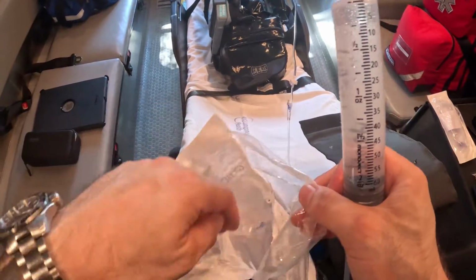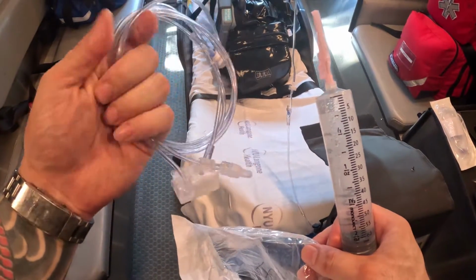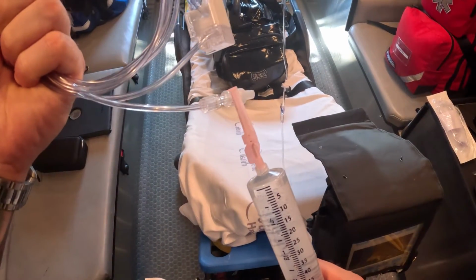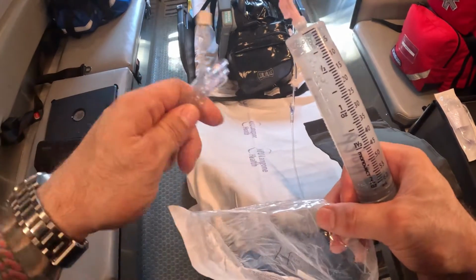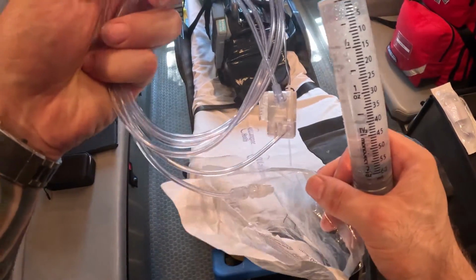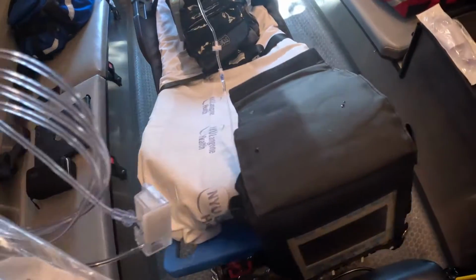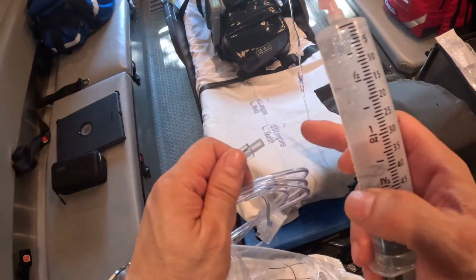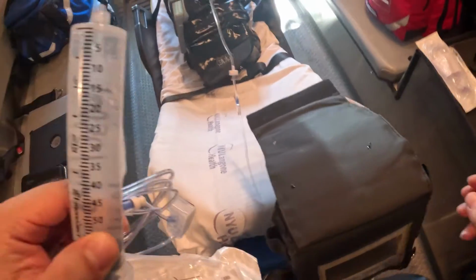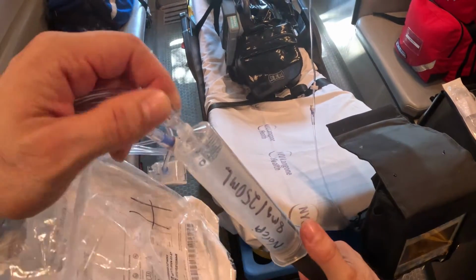I usually use the bag in order to flush it, and then I don't unravel it, I keep it just as is. This is the side that is going to go into the patient. This is the side that we're going to flush. So I keep this like so, it's flushing here. Disconnect this. You want to be careful that you don't touch this port again. Disconnect your needle. This goes in the sharps container, and then you connect your syringe, and then what you're going to do is you're going to flush.